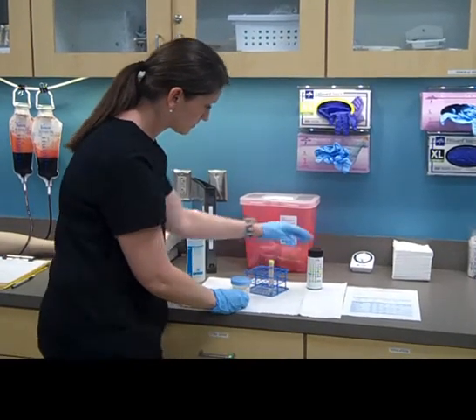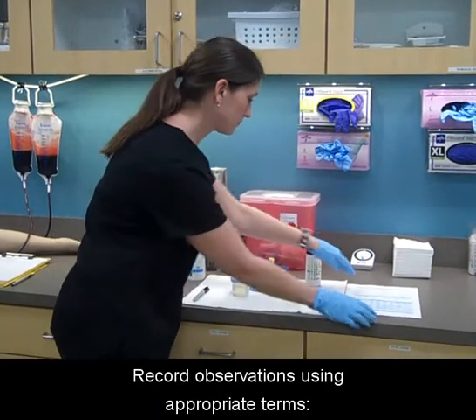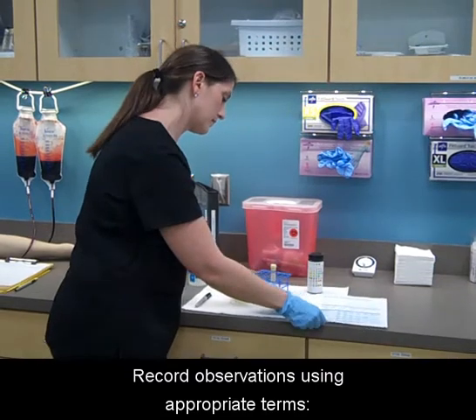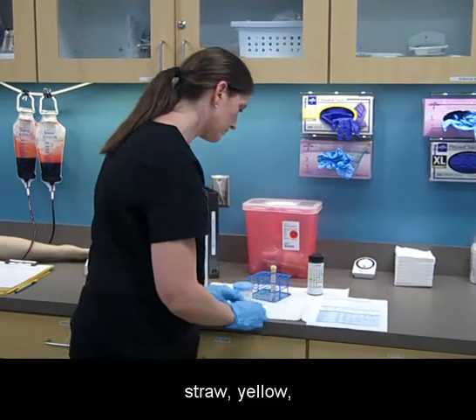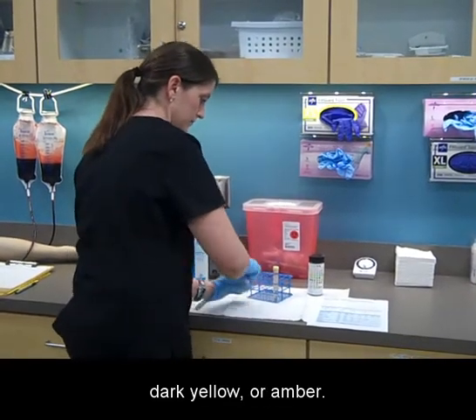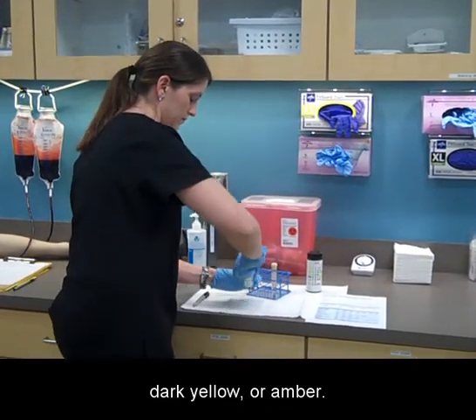Assess the color and record observations using appropriate terms: straw, yellow, dark yellow, or amber.